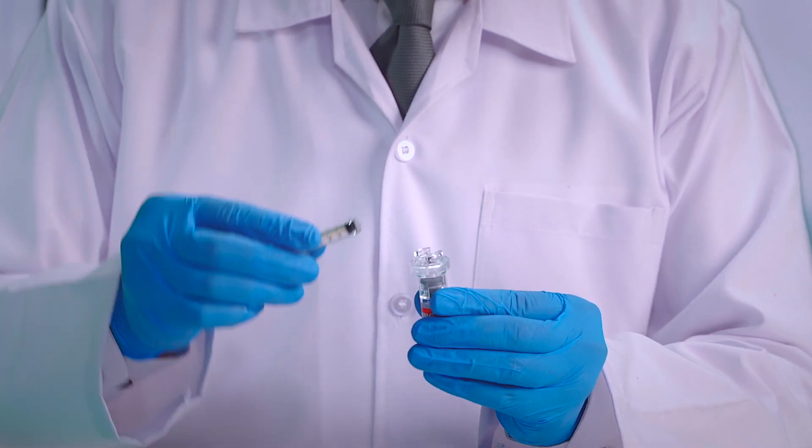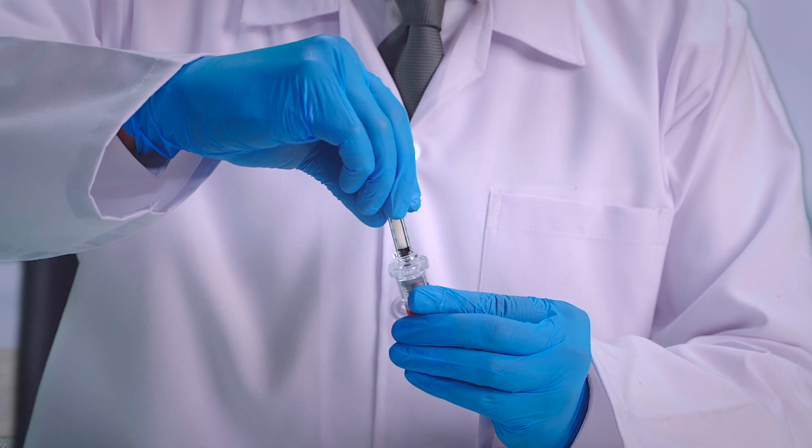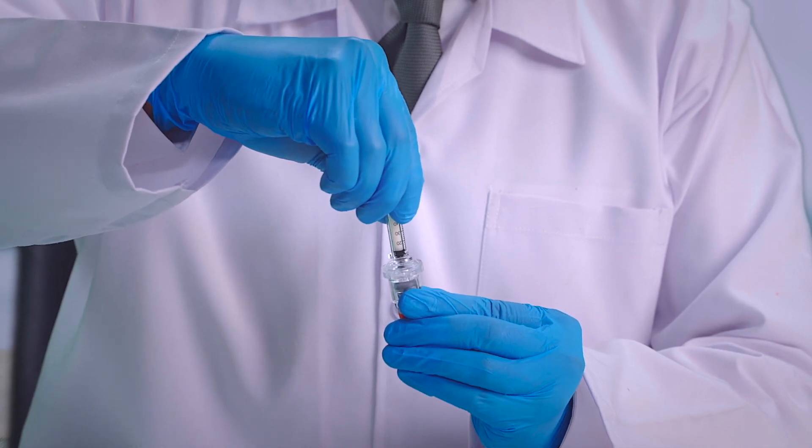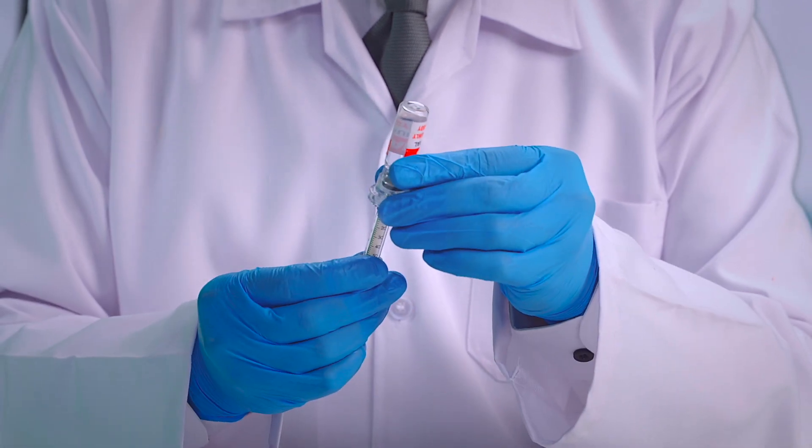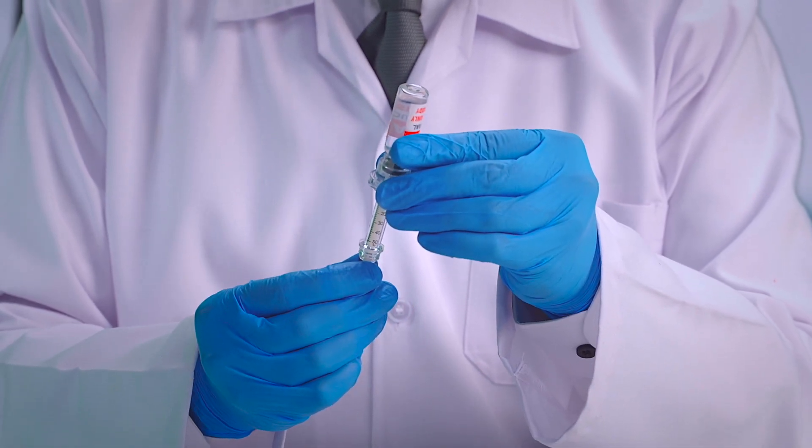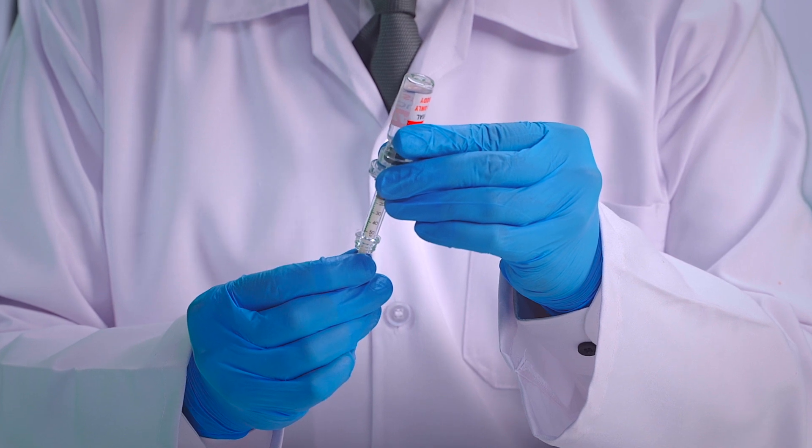Attach the cartridge tip by turning clockwise until secure. Pull back the plunger to the required dosage fill line.